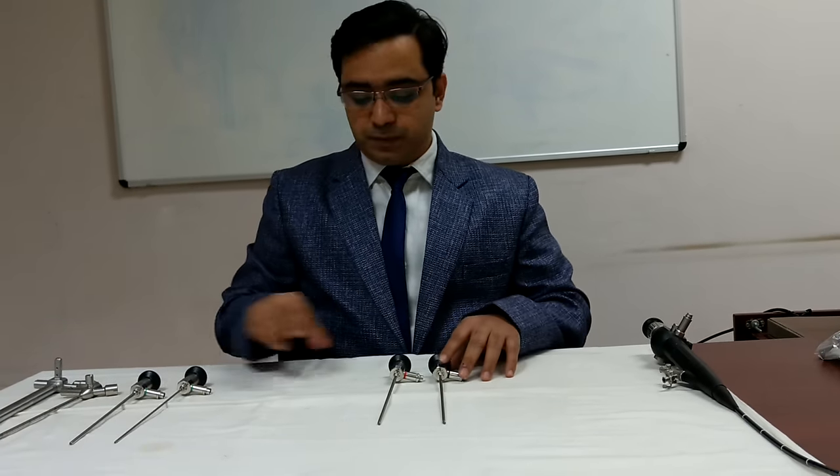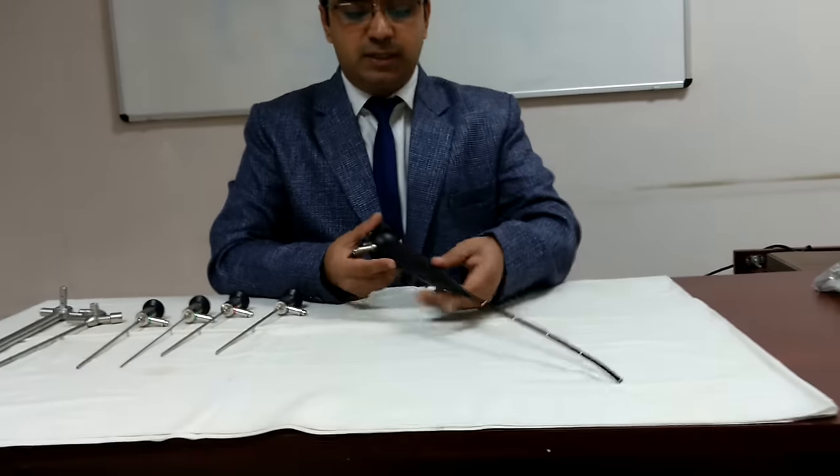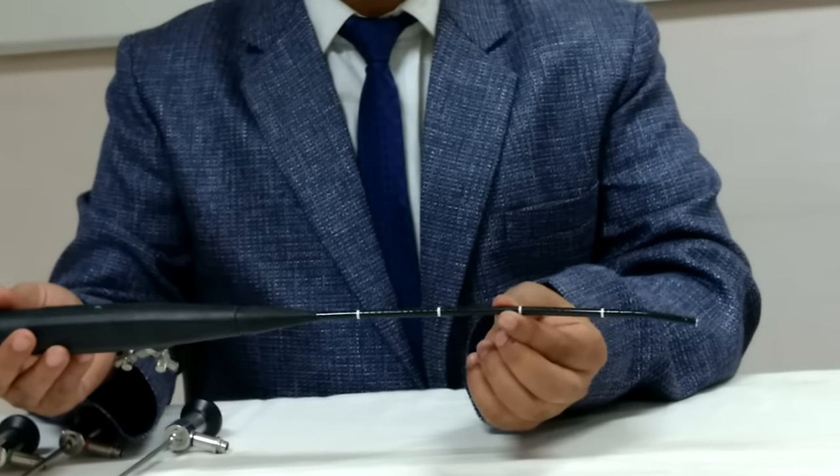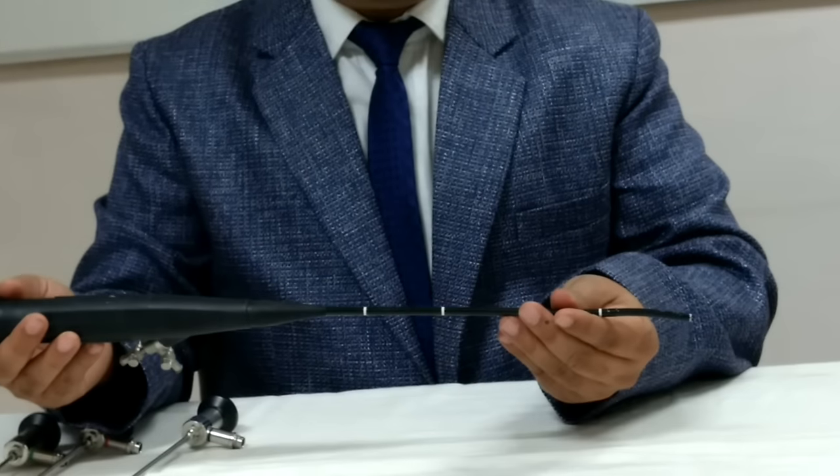So these are nasal endoscopes. Another endoscope just I want to show you is this is flexible laryngoscope. Similar instrument if this flexible part is longer that is bronchoscope. So this is flexible laryngoscope.